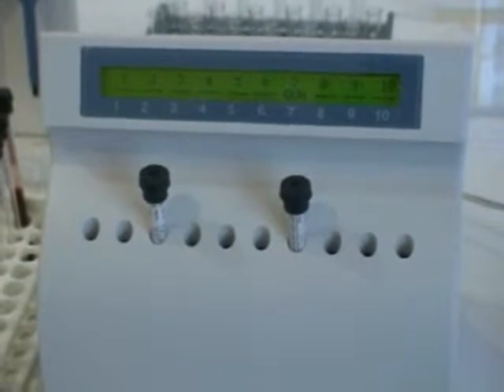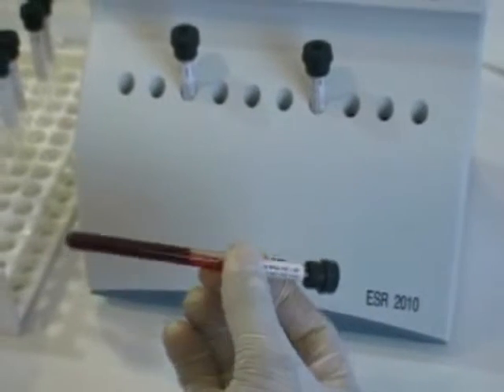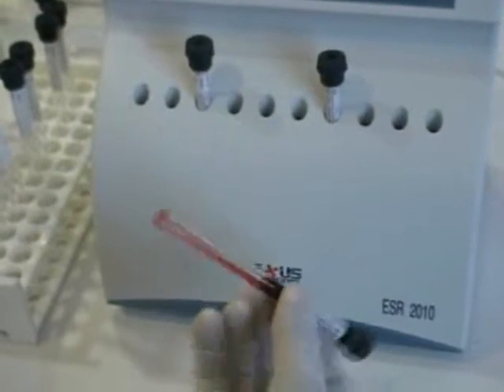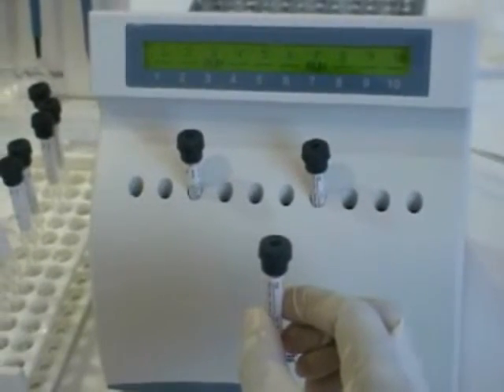A minimum of 1 or 10 ESR tubes can be tested at a time. 20 test specimens per hour can be performed with ESR-2010.